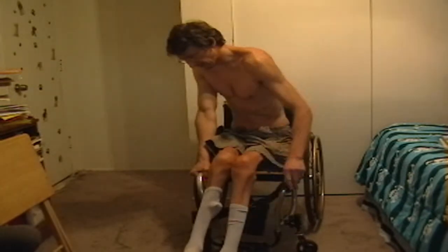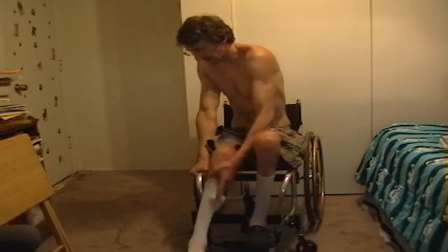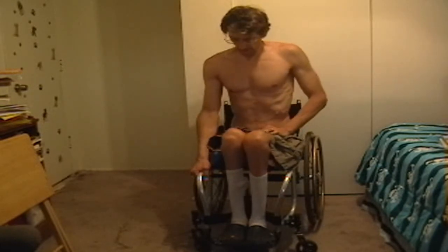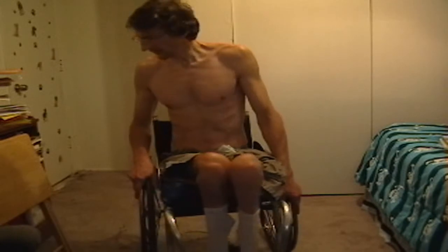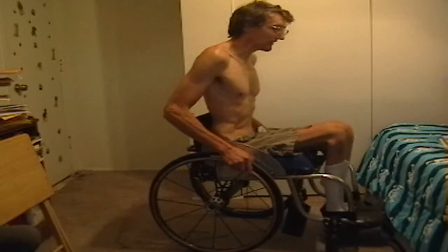I put my left hand in a fist, I put my right hand onto the wheelchair frame, and I lift my back hand around. I have a very low injury — L1 — so maybe that's why I can do that. Let me do it again to show you from this side.